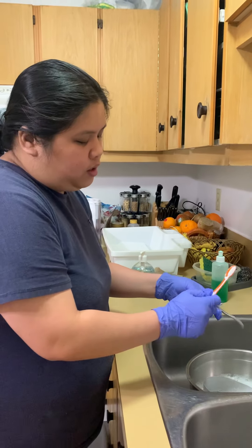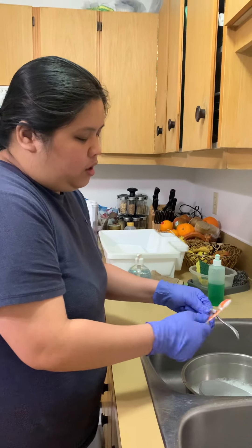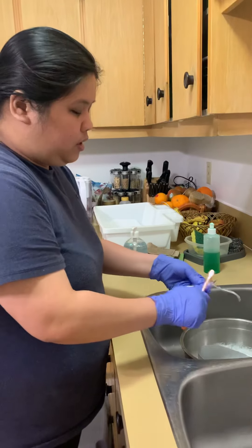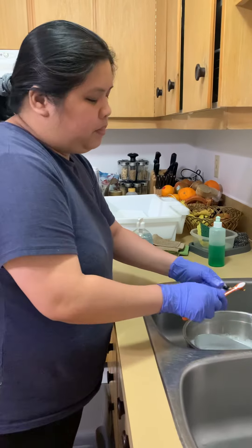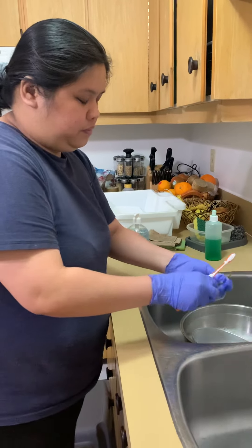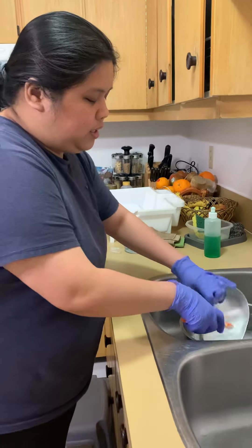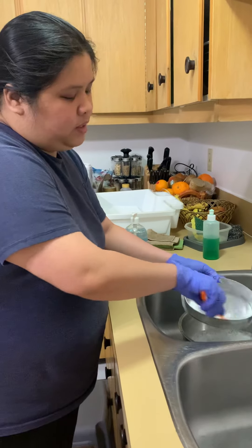Just be careful of sharp objects — they might poke you or might puncture your gloves. Then clean the scalpel holder. And then this one — I'm assuming this is my kidney basin, which is mostly used in a medical office setup.